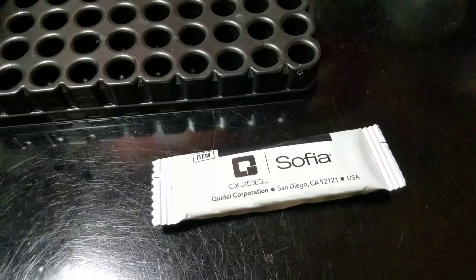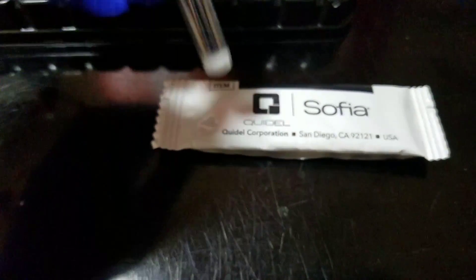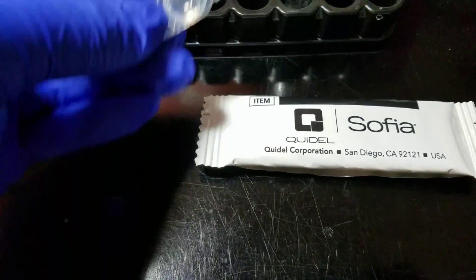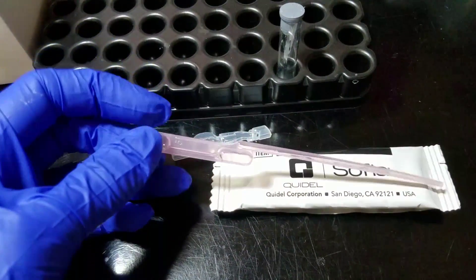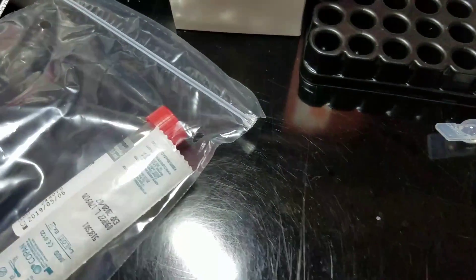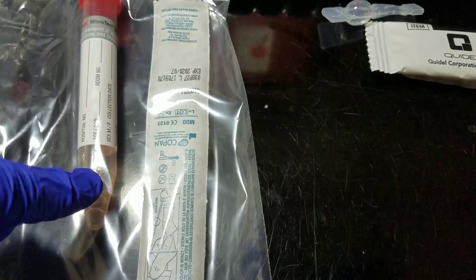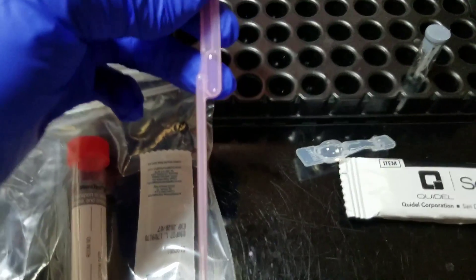I have a survey that I have to do, so I'll show you guys how to do it with that. The little setup here is the reagent. You twist off the cap and add it in there. Then we would use this to vortex it — just hold it down and that shakes it up. Then we would take one of these pink pipettes and suck up the viral media. Once we vortex that to get anything on this swab really mixed up well into the media, we would pipette it up — press this little bulb and pipette it up to the top. The overflow goes into this second little overflow bulb.